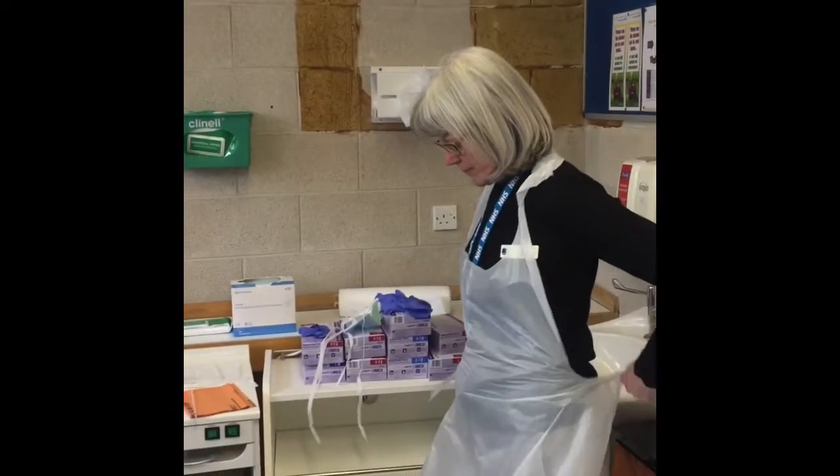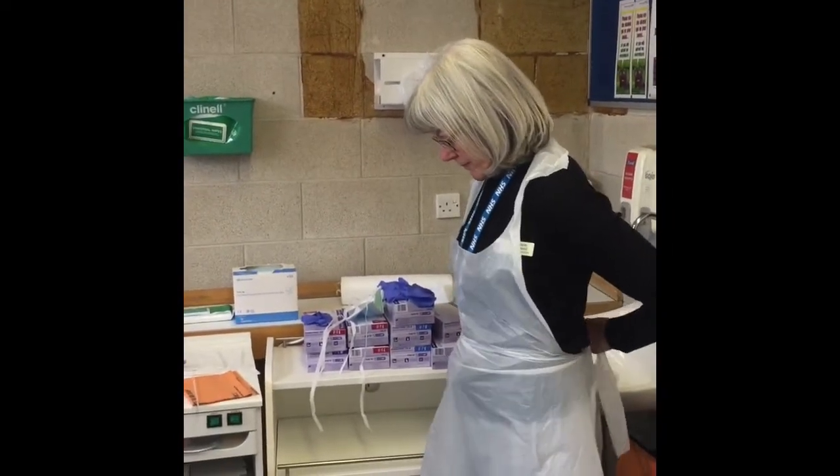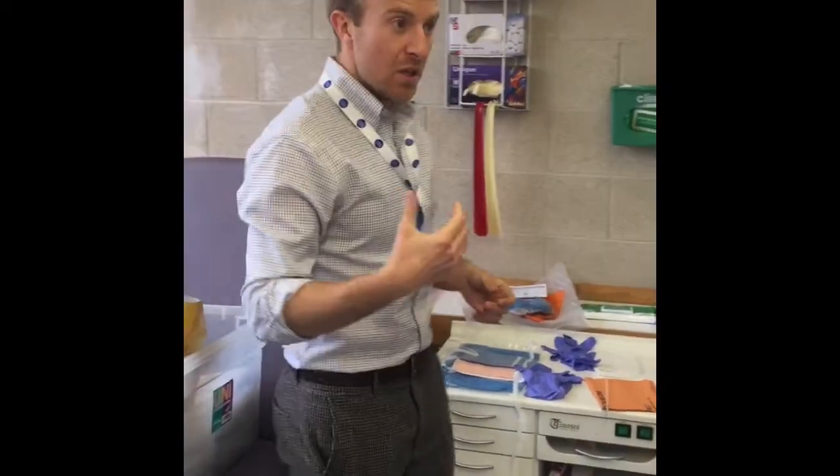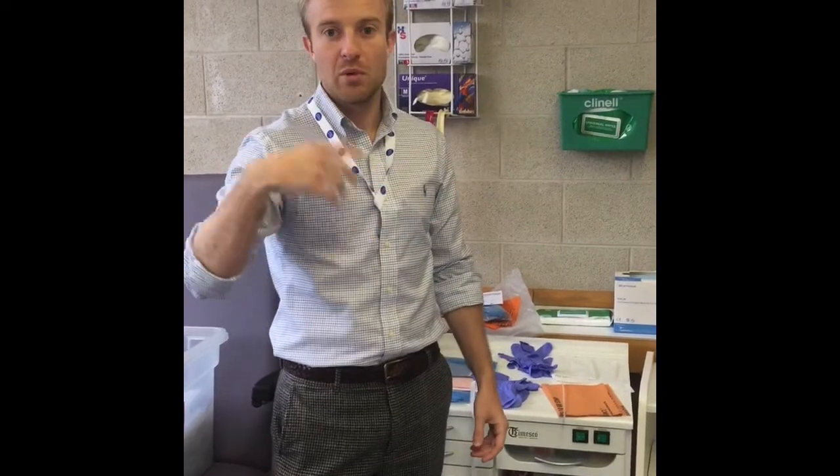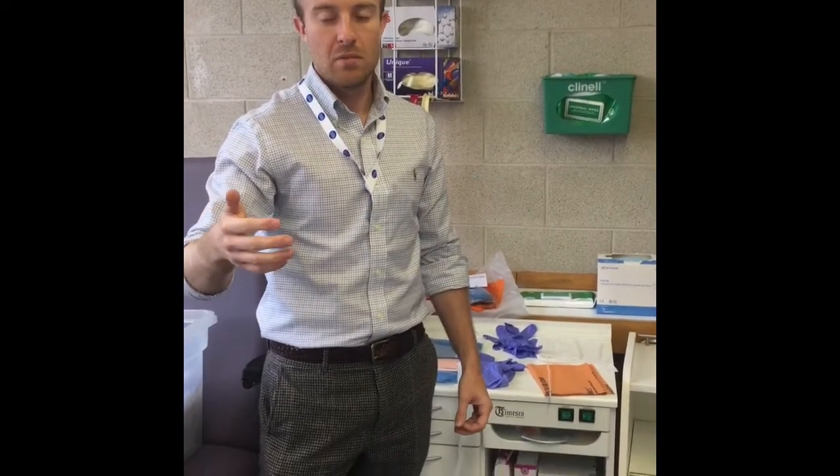So Sarah as buddy, you're going to wear PPE which is an apron, gloves and a mask. And then I'm going to wear something slightly deviated from the PHE PPE based on the fact we've got to clean the room and just enhance our protection as best we can.